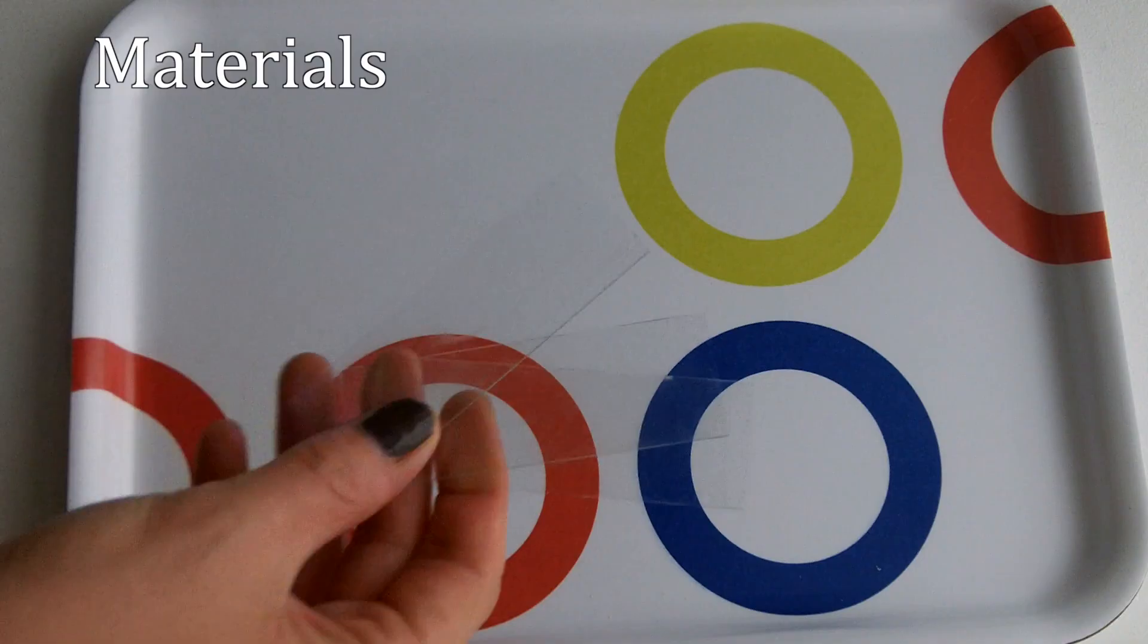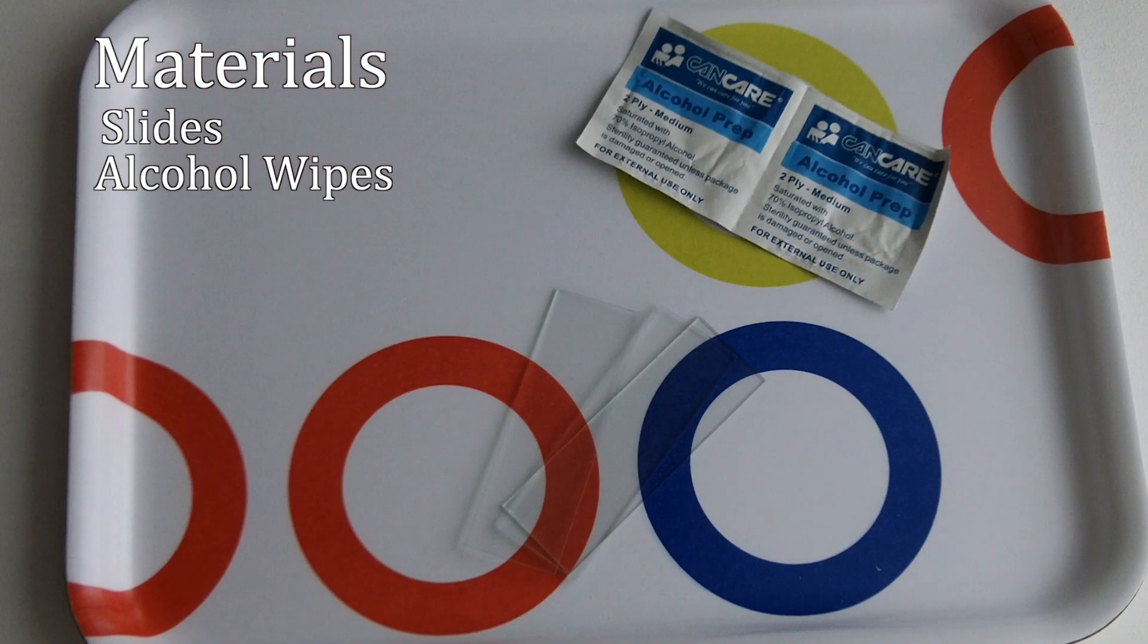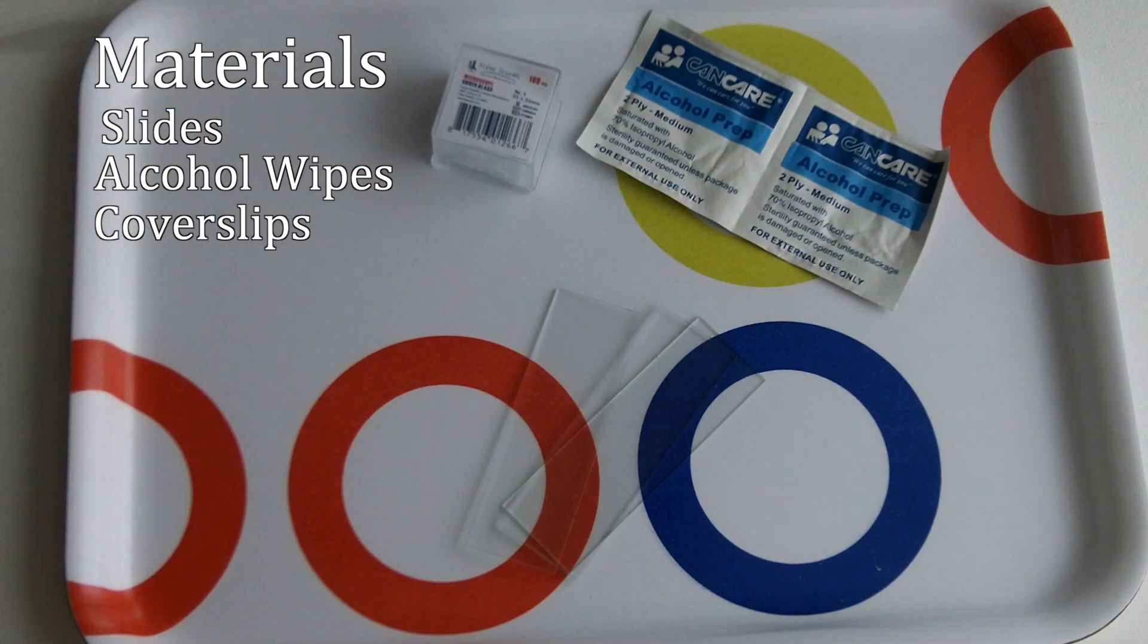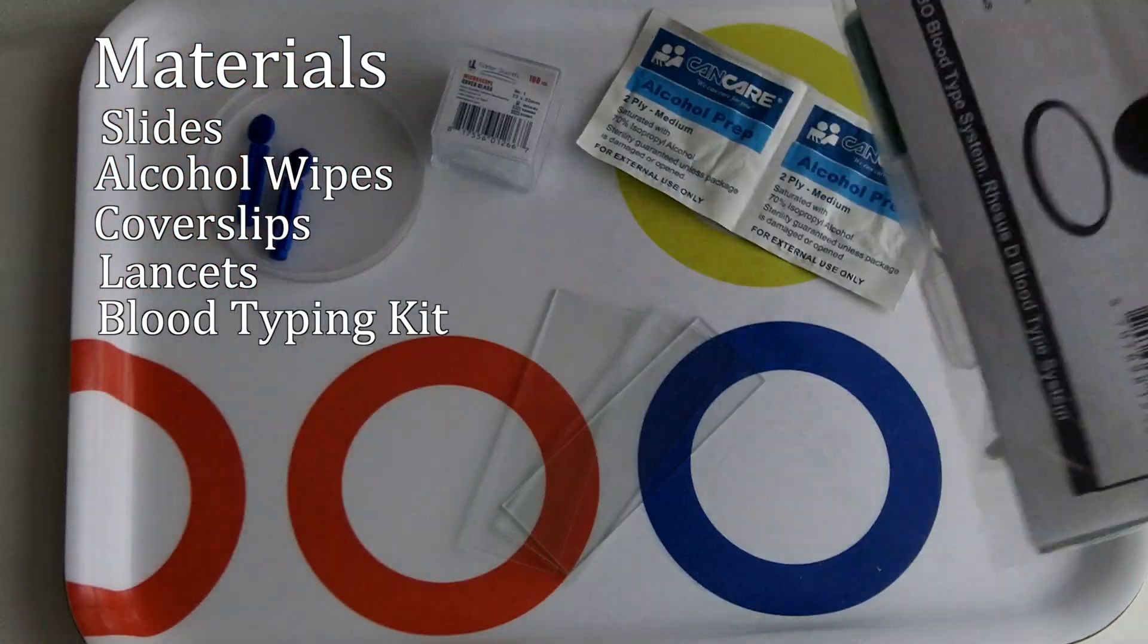Blood Smears and Blood Types. You will need slides, alcohol wipes, cover slips, lancets, and a blood typing kit.